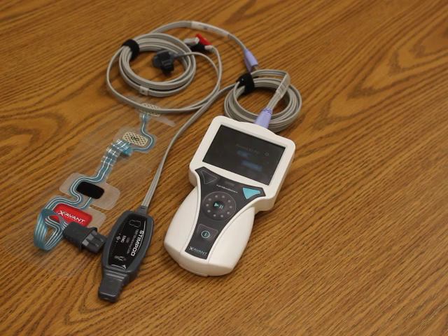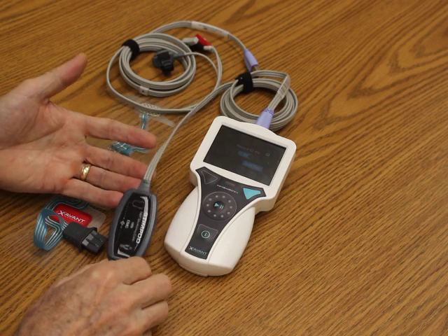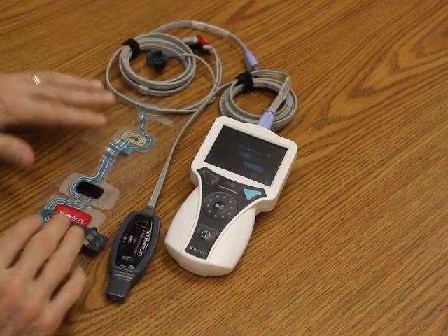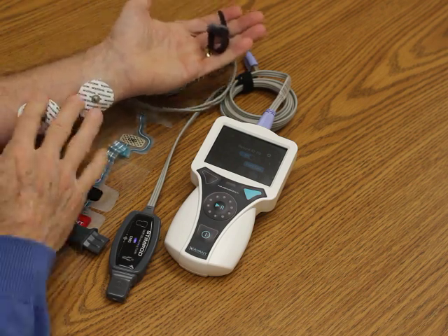My name is Kevin Luters. I'm with Bell Medical and I'm excited to introduce the Stimpod 450X Plus. The Plus is a new Stimpod that has a color display, a touch screen display, waveforms, memory, and it also has a rechargeable battery. It's a significantly improved Stimpod that's extremely easy to use. It does have the capability of doing electromyography or acceleromyography, and we continue to be the only device that at the simplest change of a cable you're able to do EMG with a proprietary EMG sensor or acceleromyography with standard electrode leads.